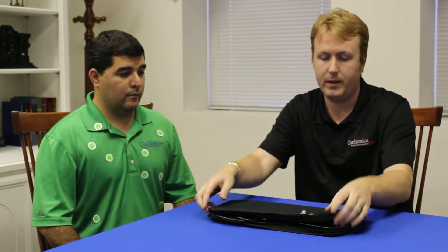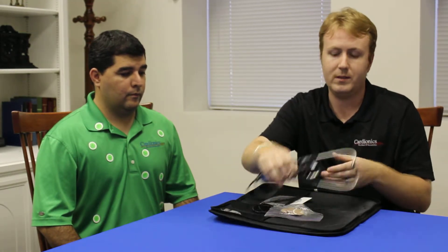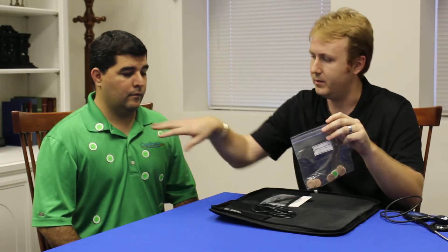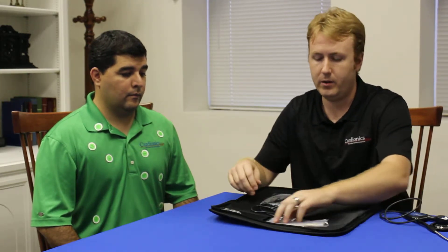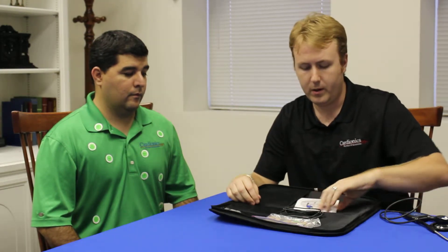The system is very easy to pack and unpack — this is the complete system right here. The full complete system comes with one stethoscope, 105 patches — that's 7 packs of the 15 patches — all labeled for the specific location in which they should be adhered. It also comes with a USB cable for connecting to the computer and the SimScope software.